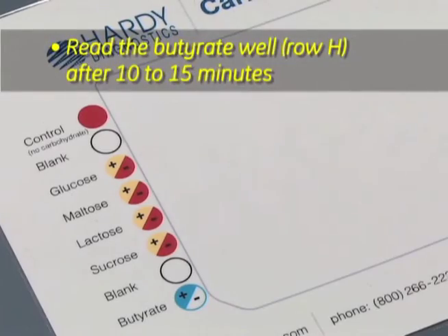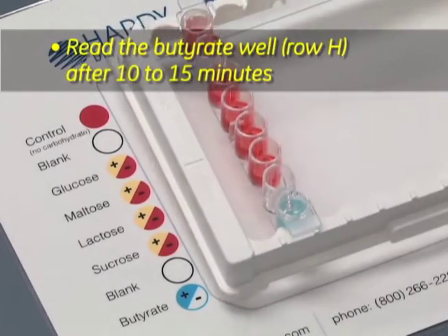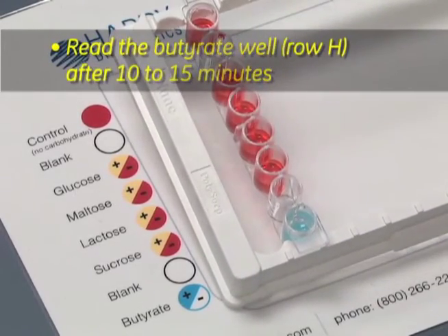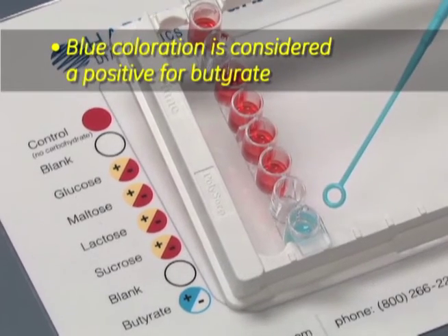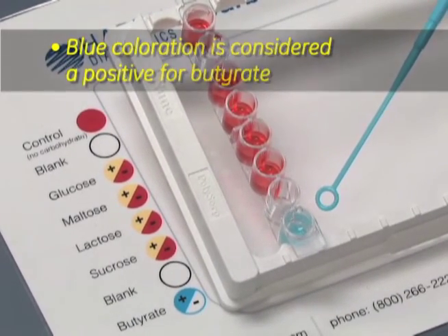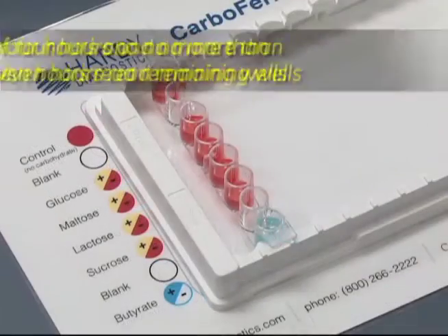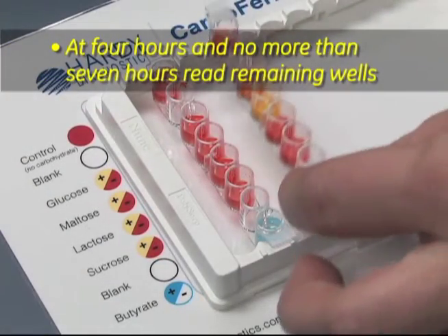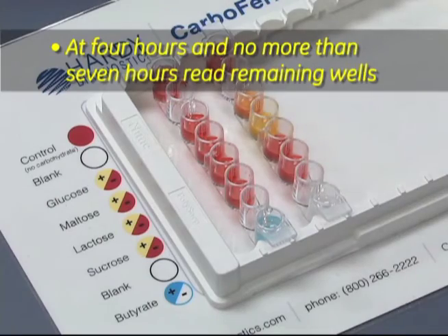After 10 to 15 minutes, read out the butyrate well in row H. Any blue coloration will be considered a positive for butyrate. At 4 hours of incubation, but no longer than 7 hours, read out the remaining wells.